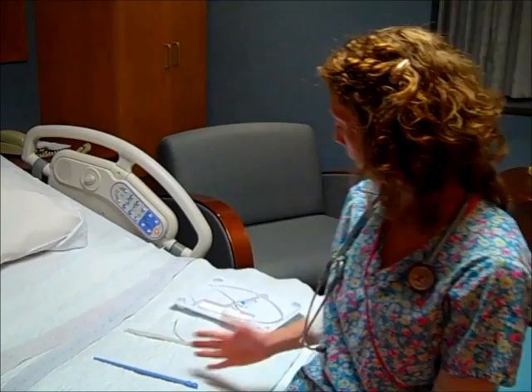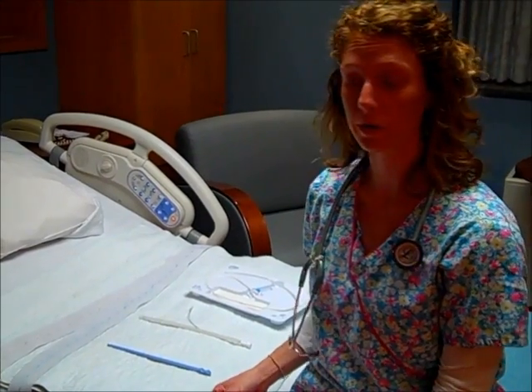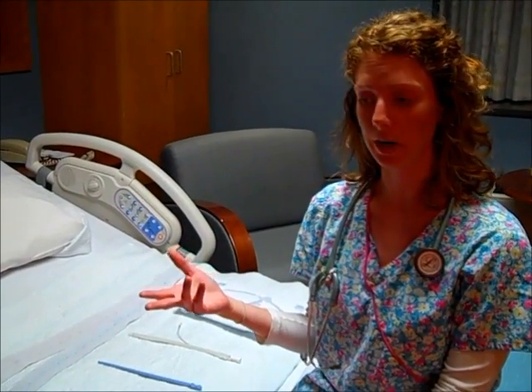So now I'm going to talk about 3 specialized tools that you would only see on a labor and delivery unit and some of the reasons that we would use them. We talked a little bit about the toco transducer and the fetal heart monitor to measure for contractions and for the fetal heart rate. Well, sometimes you may have a problem picking those up, and you may need a different tool to help do that job, because it's very important to know how strong the contractions are and how your baby is doing, because your fetal heart rate is what's giving you the idea of whether your baby's doing well or not, if it's tolerating labor.